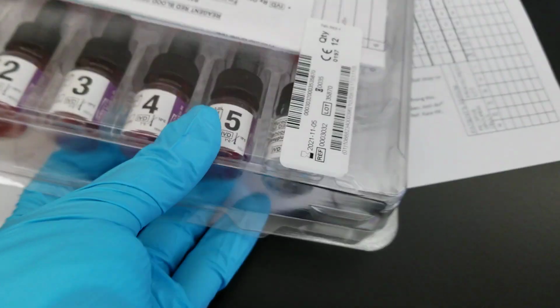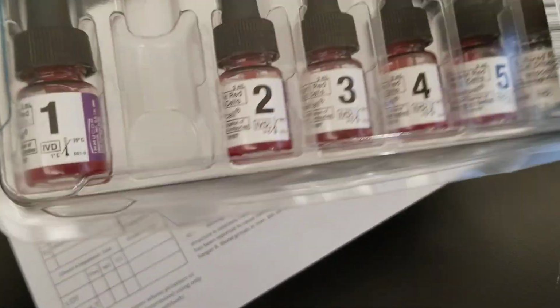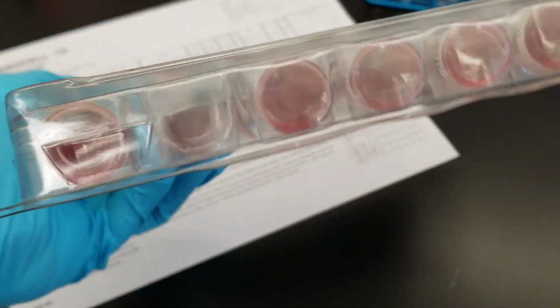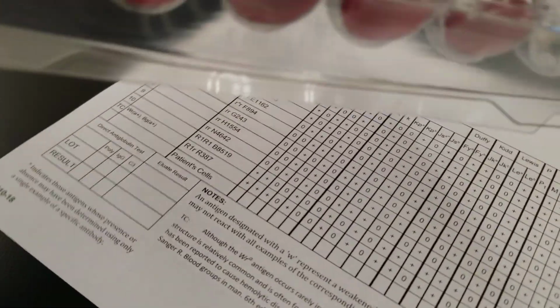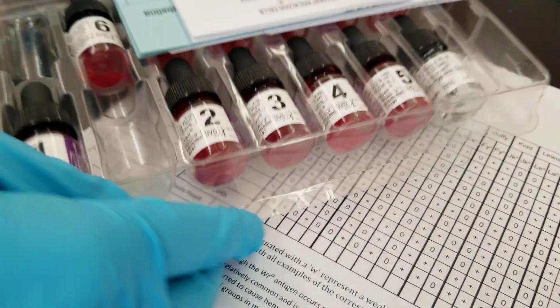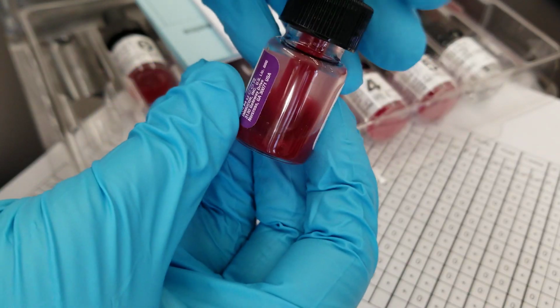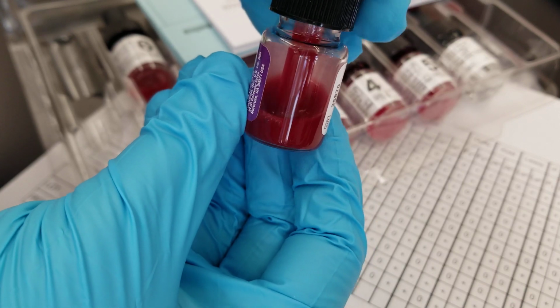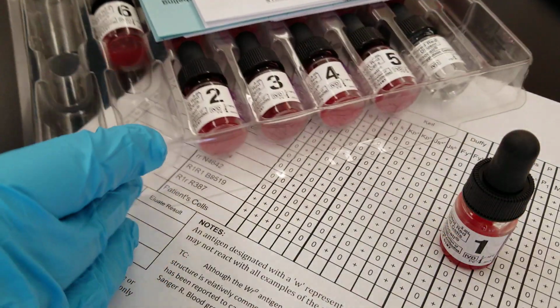So in order to do that, we need to pull this out. Whenever we use an antibody panel cell, I always just do this in the container so that you can do all of them at once. You want to make sure that there's nothing on the bottom, and then you'll know that the reagent cells are able to be used. So let's pick out number 1. Okay, so there is still a little bit there. We can resuspend this way gently. All right, and we'll continue to invert. All right, so that is the one we will use.